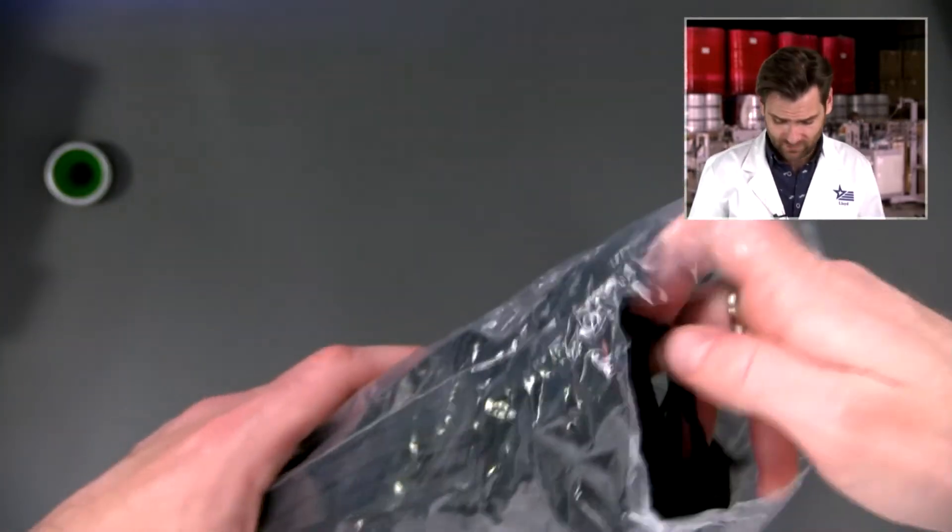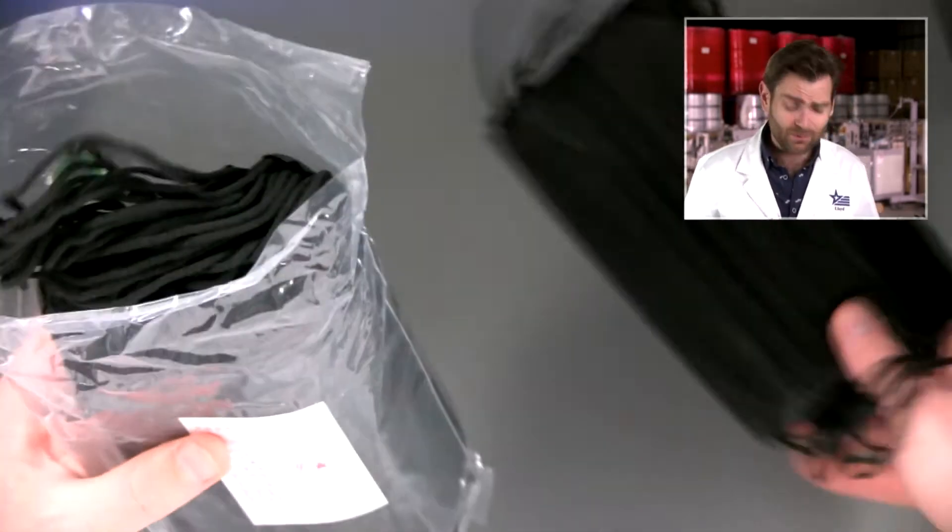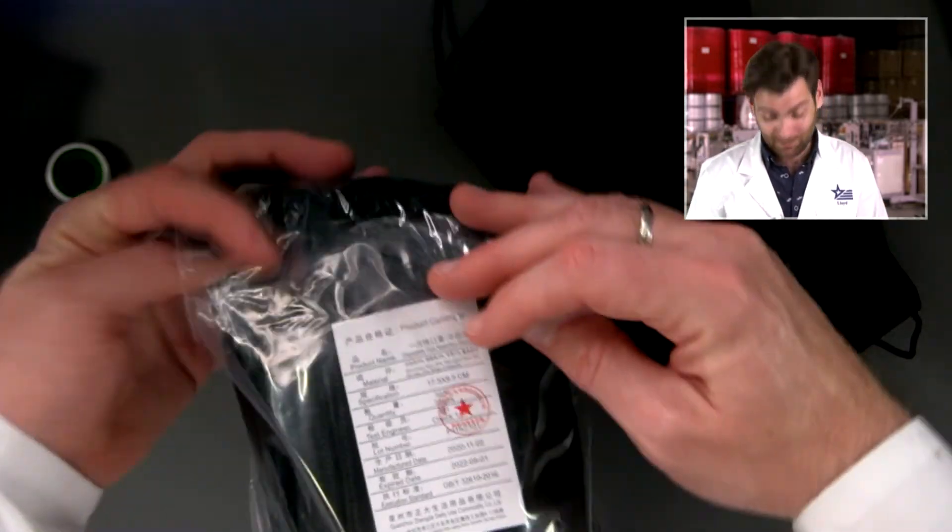But you can just open it up and anybody can stick their dirty fingers in there. Guaranteed my kids were back here like 10 minutes ago sticking their fingers in these masks — who knows? You don't know where their fingers have been. I mean, actually I do, and that's the problem. Gross.